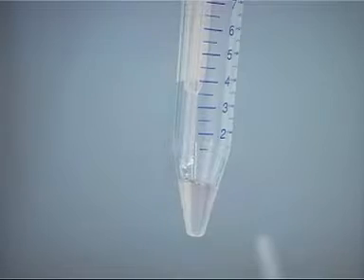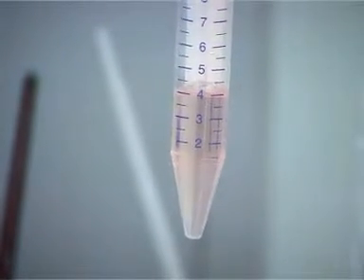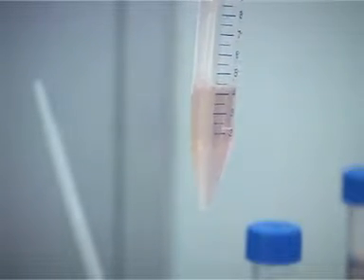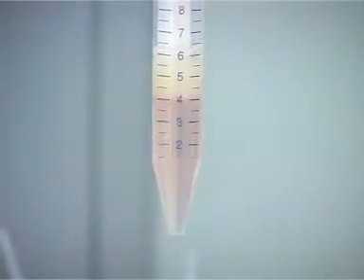In the test tube, take the lower layer of 90% density gradient, 2 ml. Slowly layer the upper layer of 45% density gradient over the lower layer. Then layer the liquid semen on the upper layer.